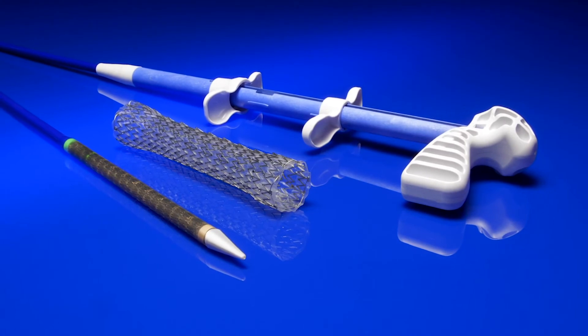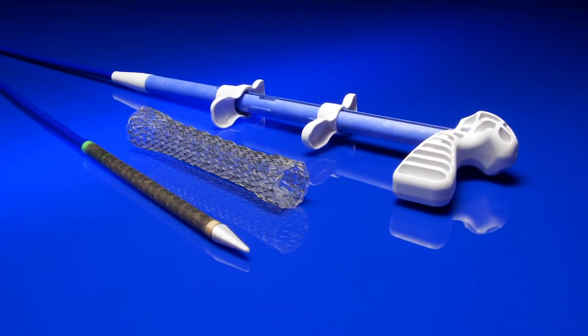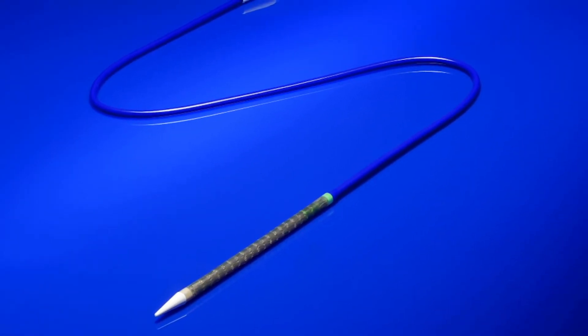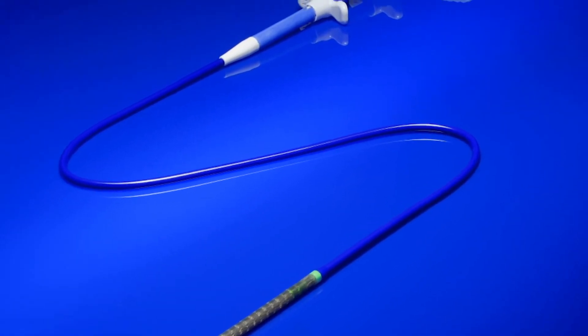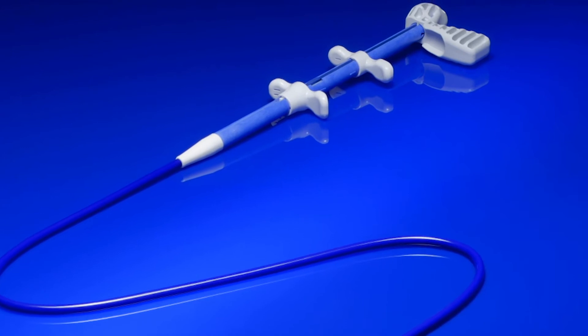Introducing the Endomax fully covered esophageal stent system. The Endomax is intended for maintaining esophageal luminal patency in esophageal strictures caused by intrinsic and or extrinsic malignant tumors and for occlusion of esophageal fistula.